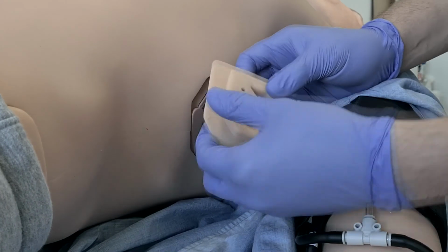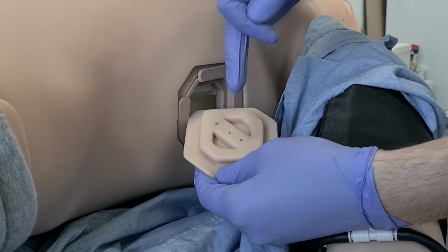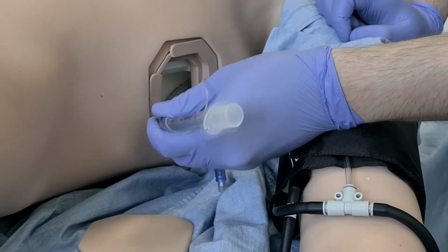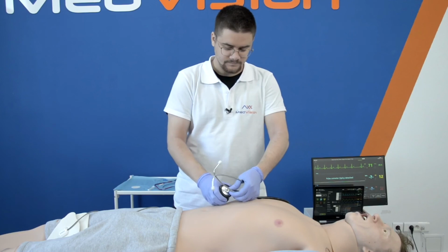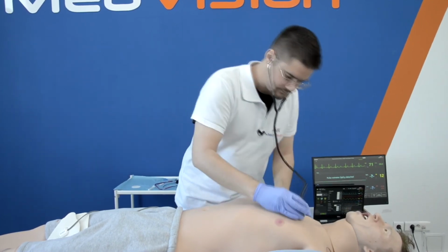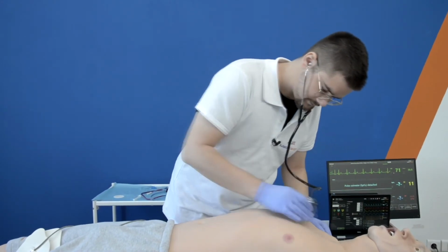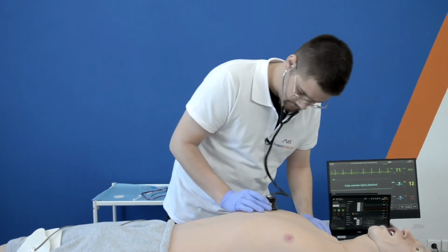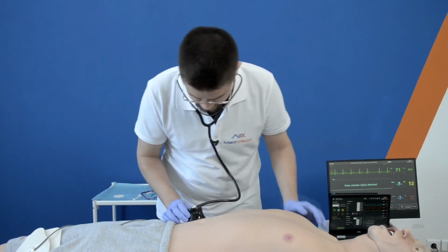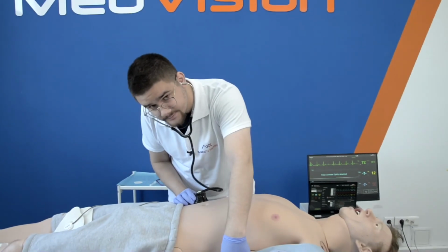On the side, there is a removable hemothorax/hydrothorax pad with hard plastic ribs, and behind it there is a cavity for chest tube insertion. Auscultation is performed with our smart scope adapter, which has a soft, flexible rubber part so you can use your own stethoscope. Leo has 5 cardiac points, 5 lung anterior points, 4 bowel points, and 6 lung posterior points.